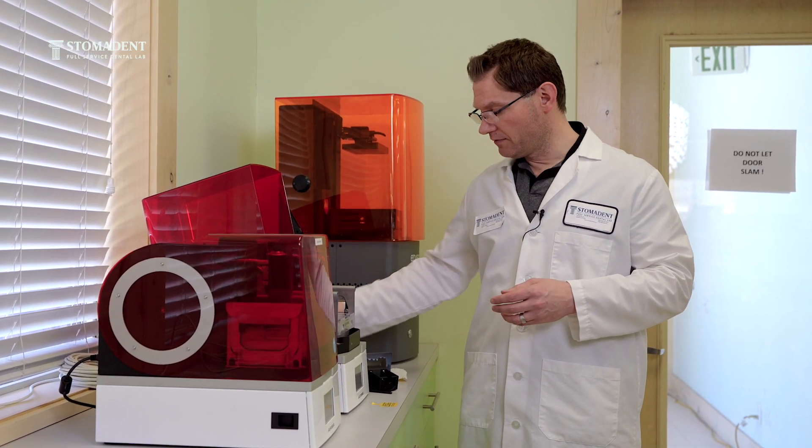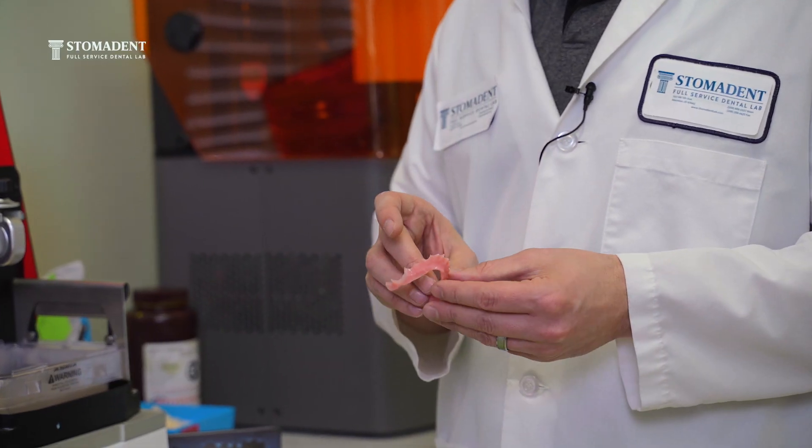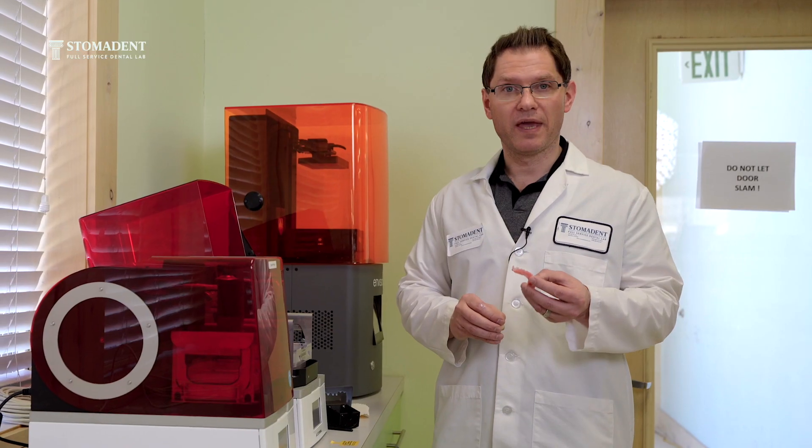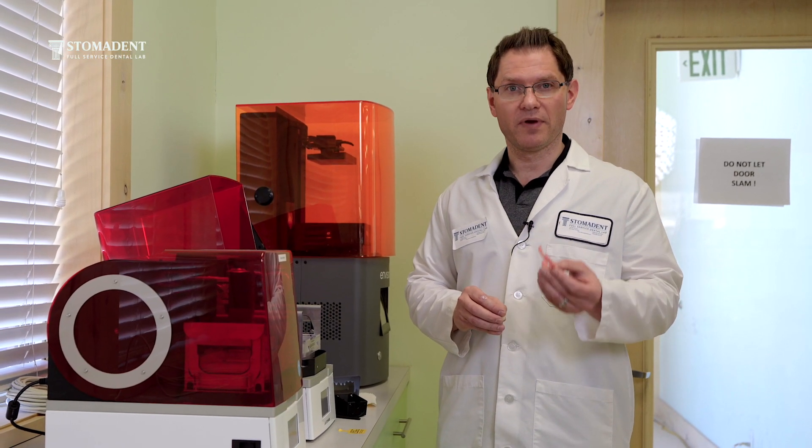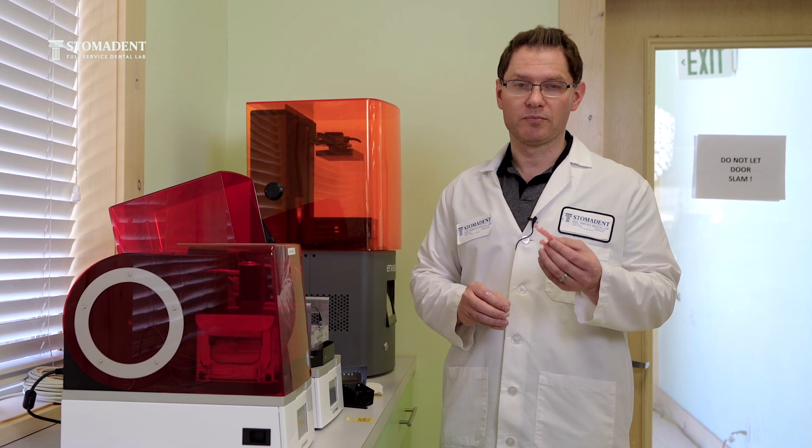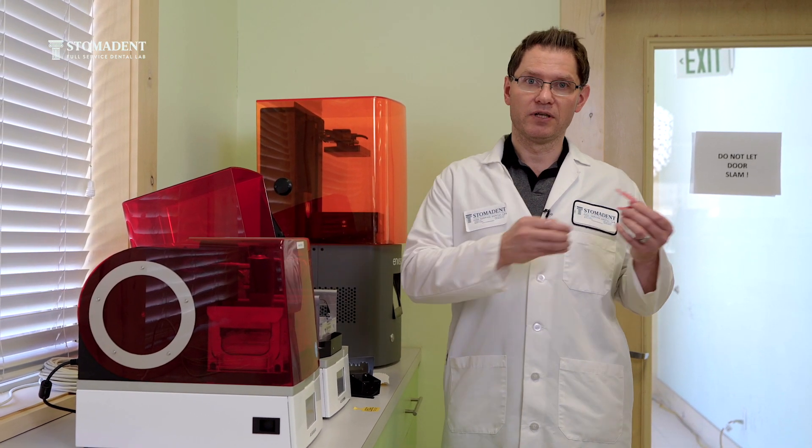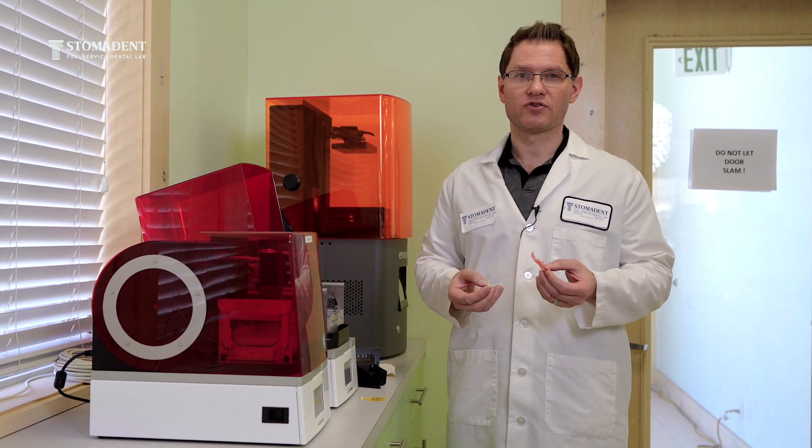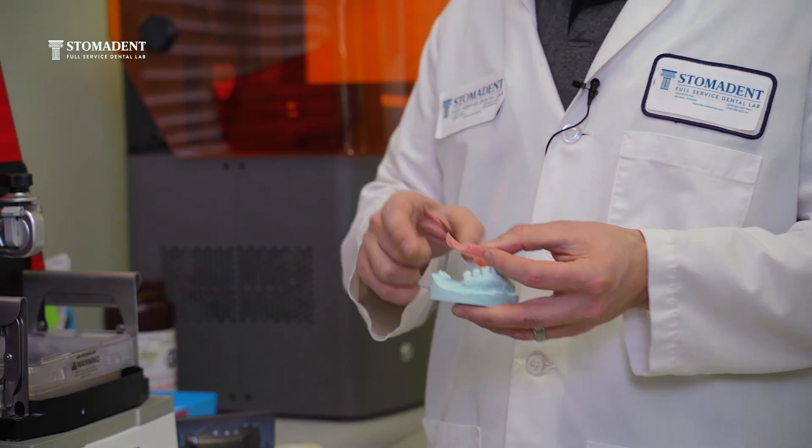As previously discussed, when we print a base for a partial, it will fit much better and more precisely than when processed in a conventional manner.